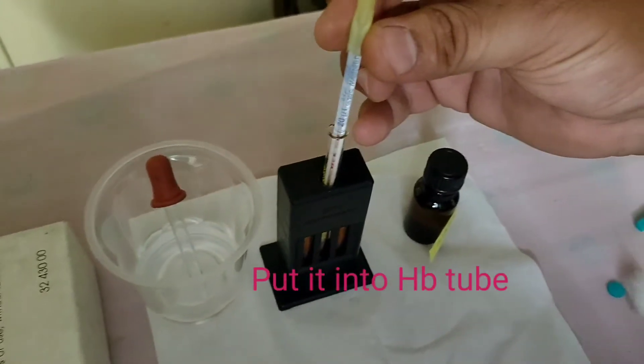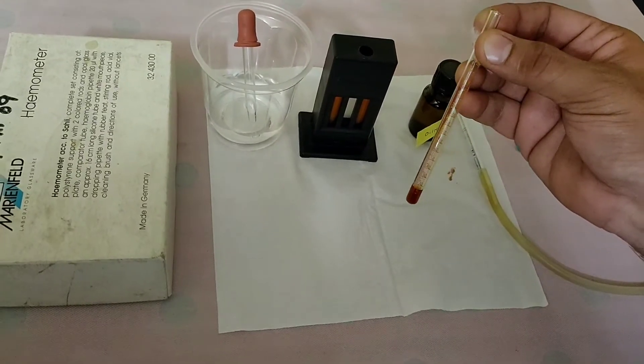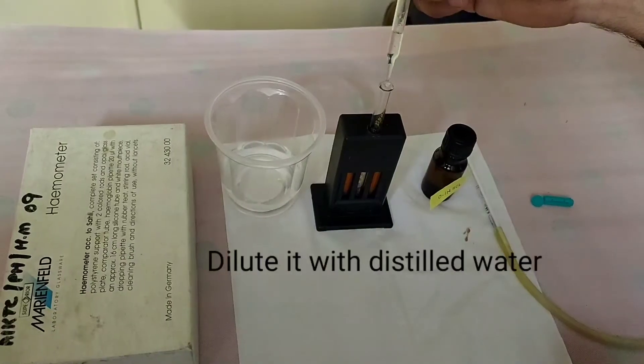Once the pipette is filled, immediately immerse the tip of the pipette to the bottom of the acid solution and let it stand for 6-8 minutes.